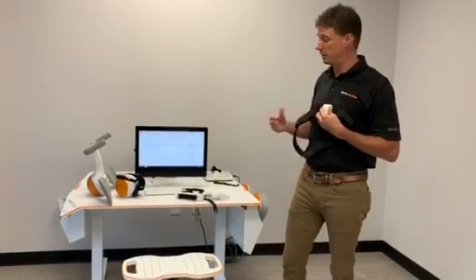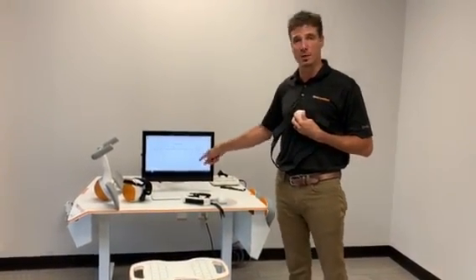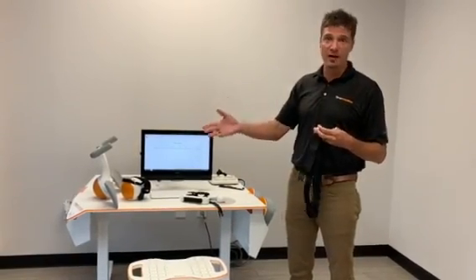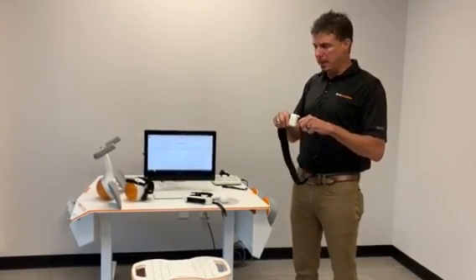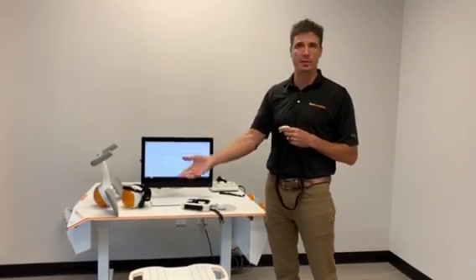These sensors and devices work in conjunction with our Tyro OS software. The Tyro OS software is the same platform software across all of our devices and is very easy to use. Basically, what these devices offer is a very fun and engaging way for the therapist to work with the patient and for the patient to enjoy the therapy session.